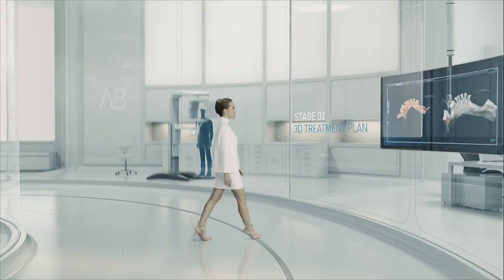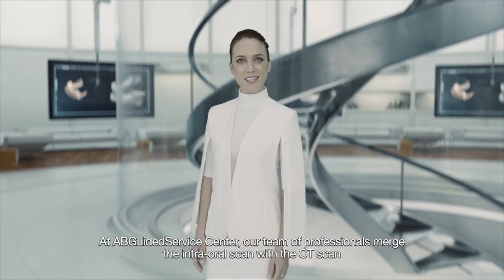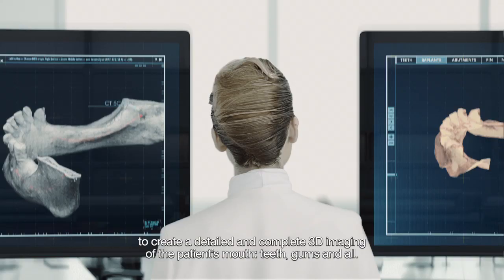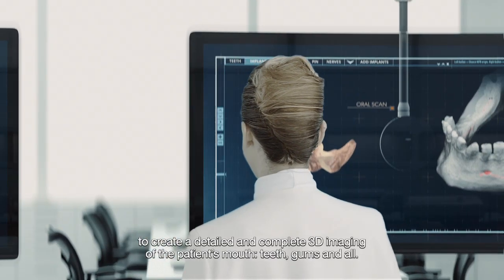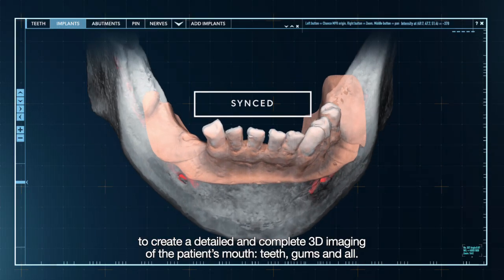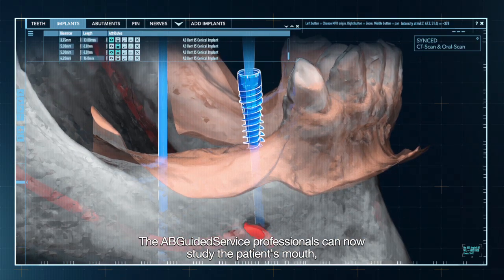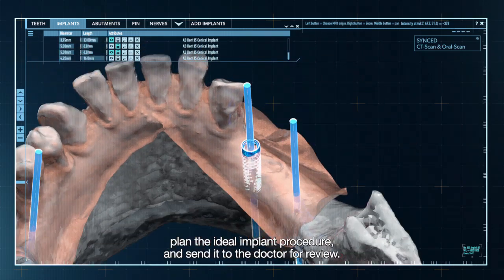Stage 2 – 3D Treatment Plan. At AB Guided Service Centre, our team of professionals merge the intraoral scan with the CT scan to create a detailed and complete 3D imaging of the patient's mouth, teeth, gums and all. The AB Guided Service professionals can now study the patient's mouth, plan the ideal implant procedure and send it to the doctor for review.